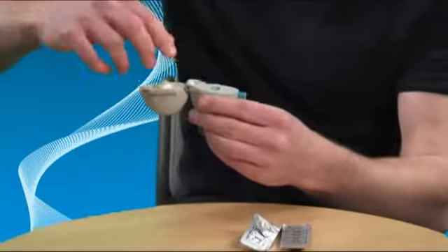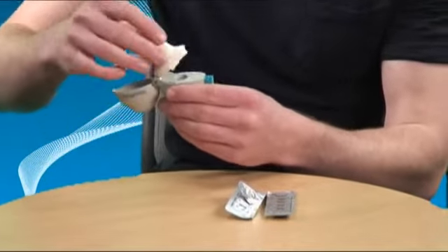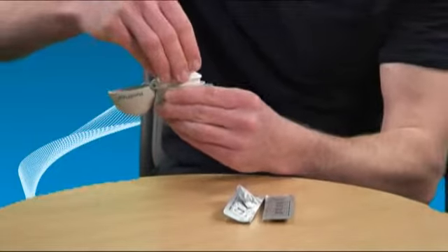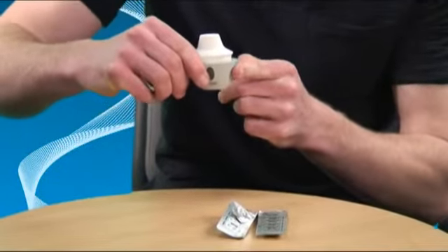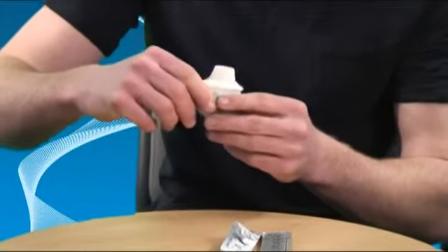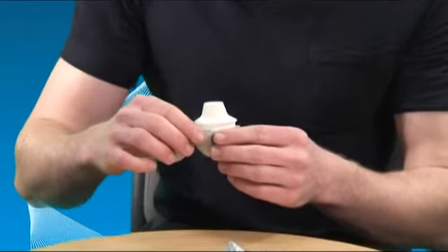Close the mouthpiece and press it down until you hear a click, leaving the dust cap open. To pierce the capsule, press in the green button on the side as far as it will go, then release.